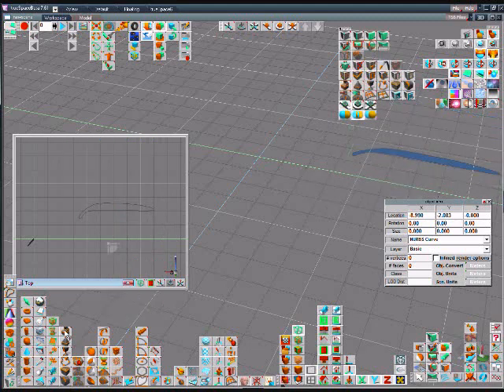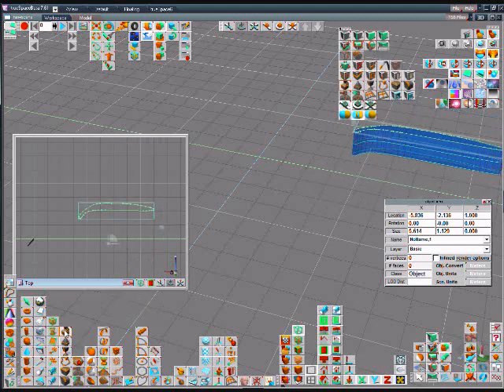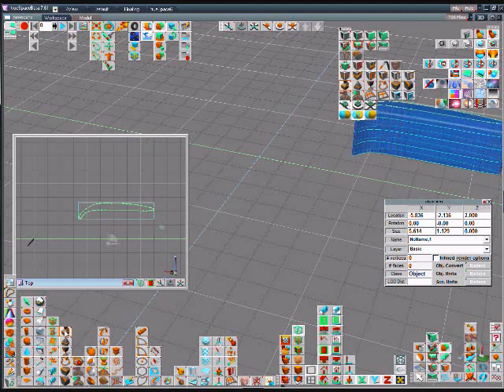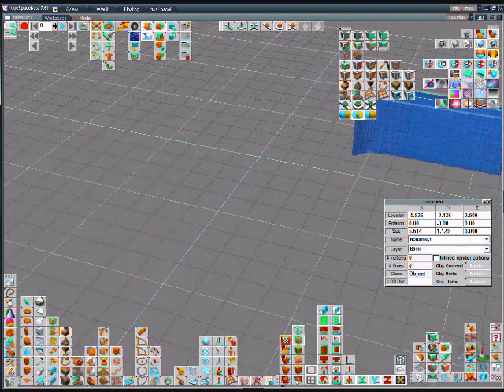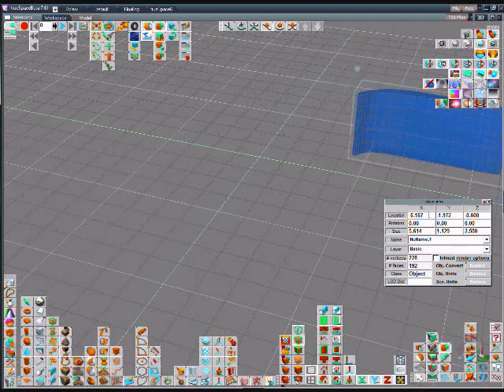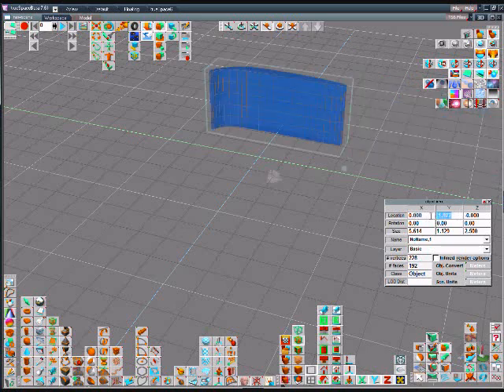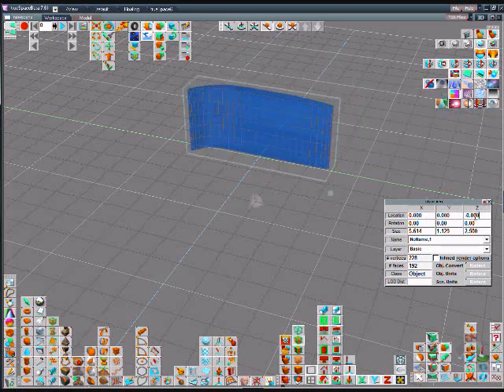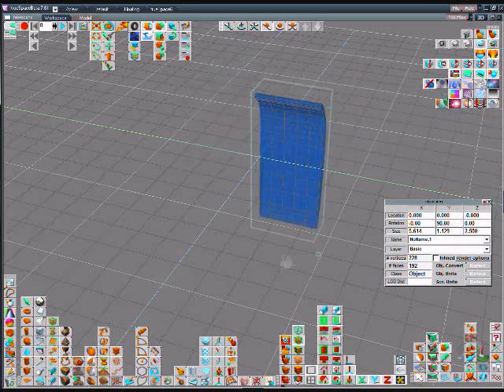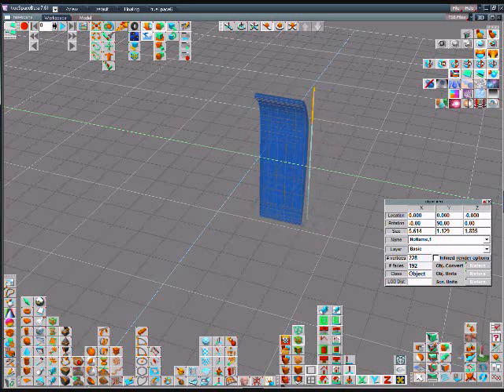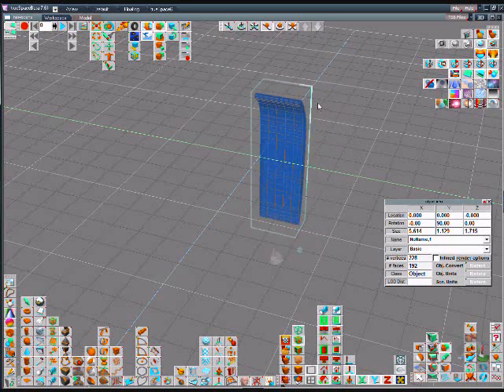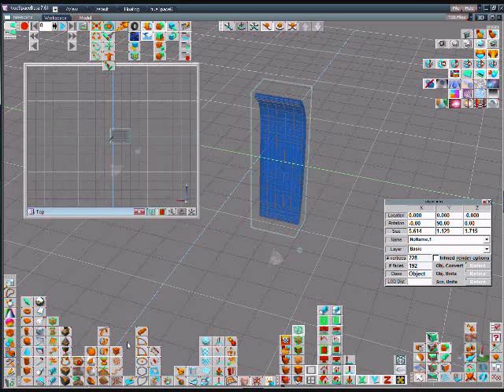Now we'll rotate that 90 degrees after bringing it back to coordinate 0, 0, 0. Stand it up, thin it a little bit, get it the right dimension for our splint.